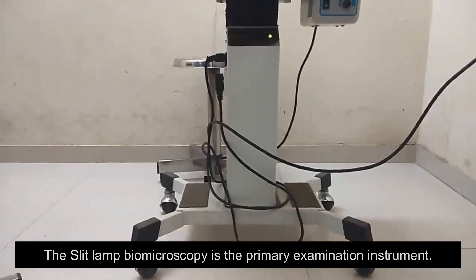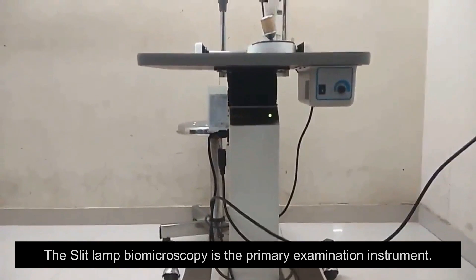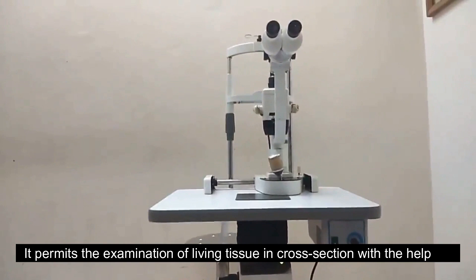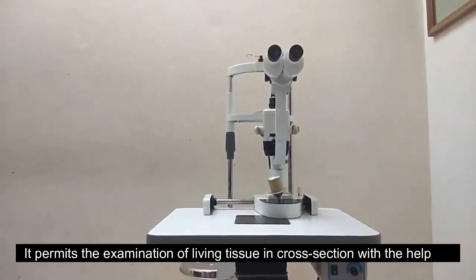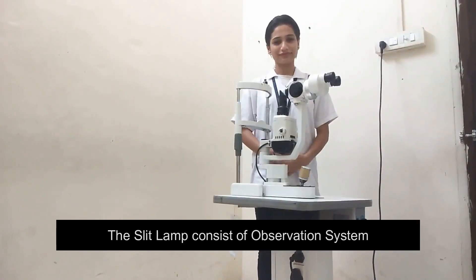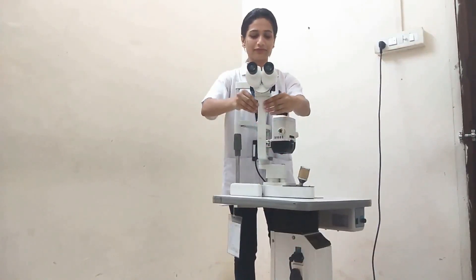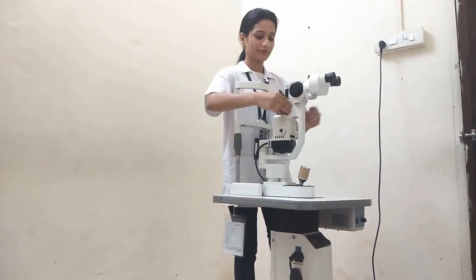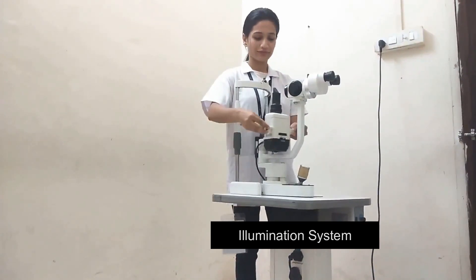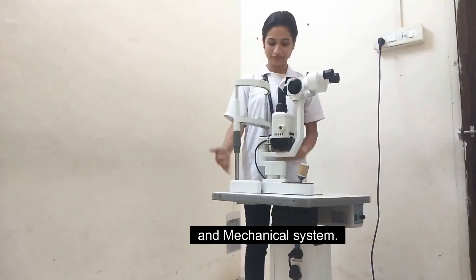The Slit-lamp Biomicroscopy is the primary examination instrument. It permits the examination of living tissues in cross-section with the help of magnification lenses. The Slit-lamp consists of an observation system, illumination system, and mechanical system.